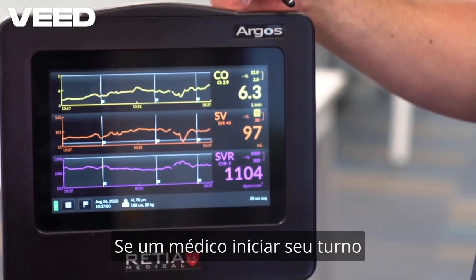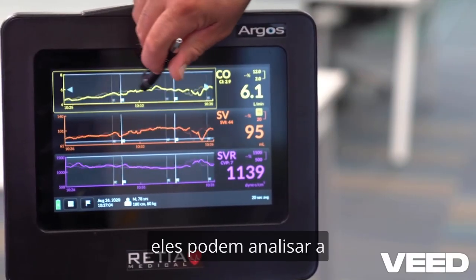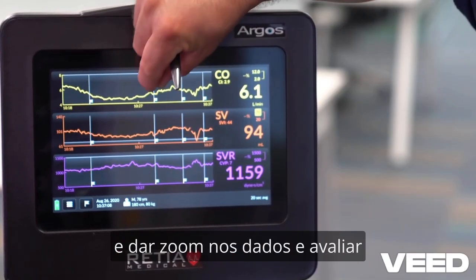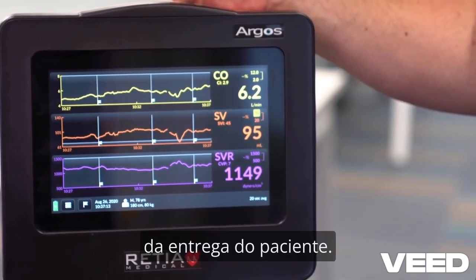If a clinician comes on shift while the patient has been monitored prior to them coming on staff, they can review the trended information back and forth. They can also pinch and zoom on the data and assess how the patient has been doing prior to their handoff of the patient.